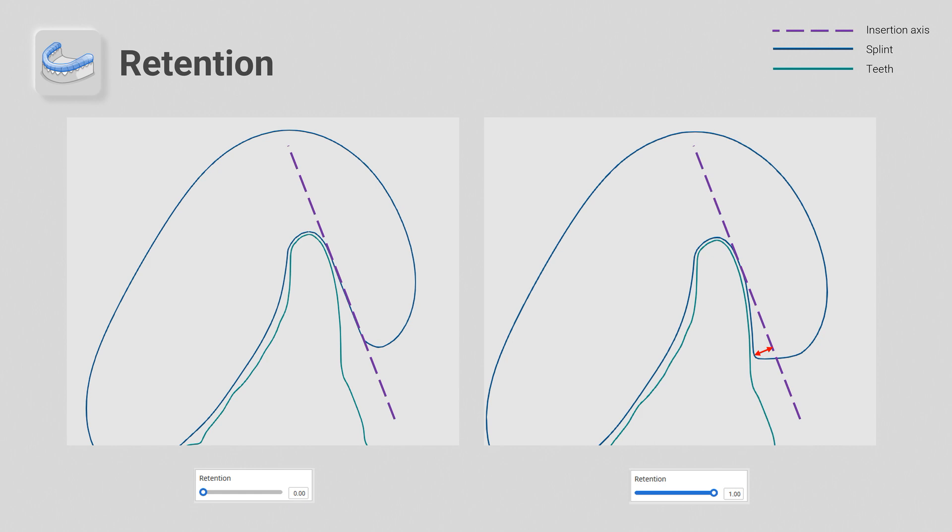So if your last job was loose in the mouth and you don't want to change the inner surface offset, try to give retention for more tightness.